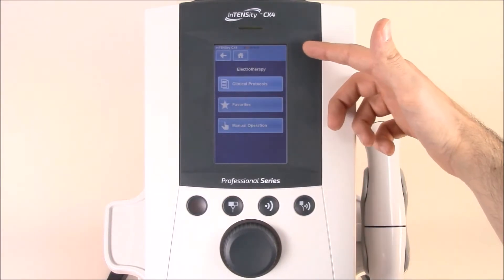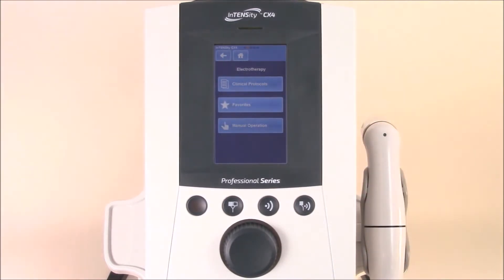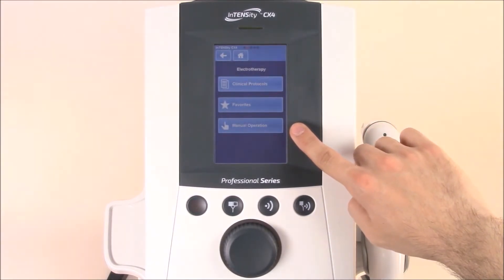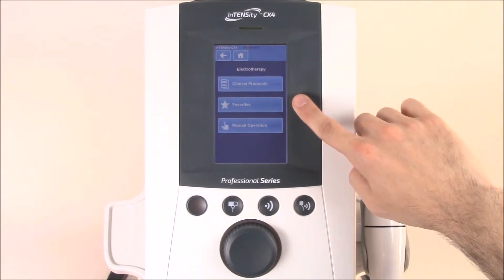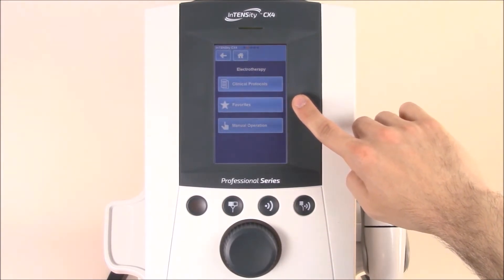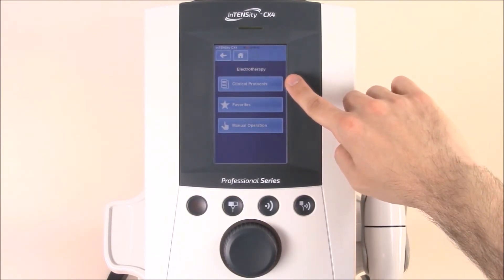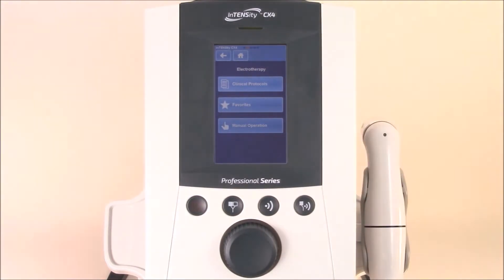Here you'll see the manual operations where you can choose from all of your current waveforms, your favorite section, and where you can save different favorite protocols for various patients or therapists in the clinic, as well as your clinical protocols section that houses all of the protocols found on the device. Here you can get waveform descriptions, as well as an anatomic model of electrode placement.